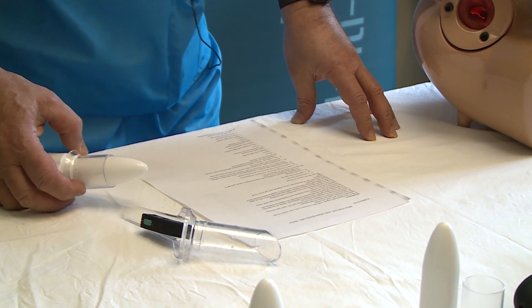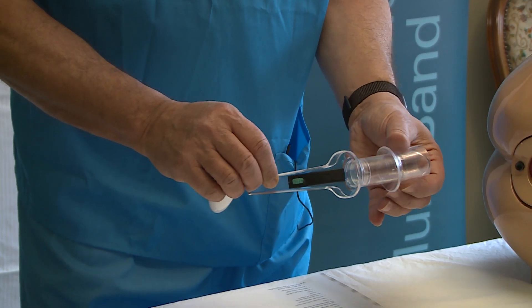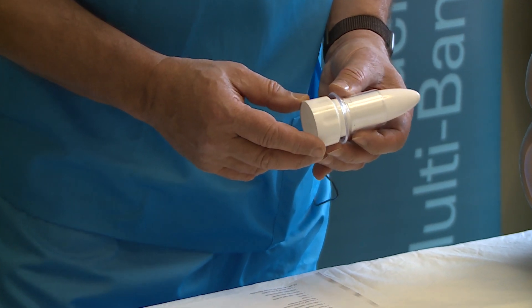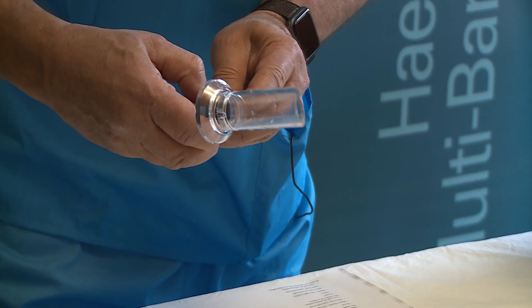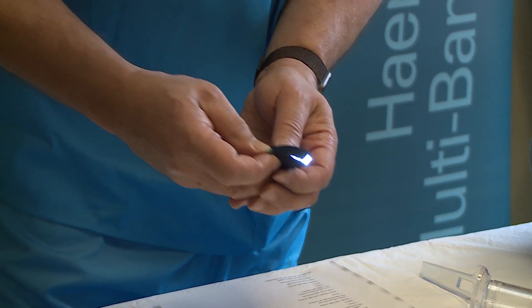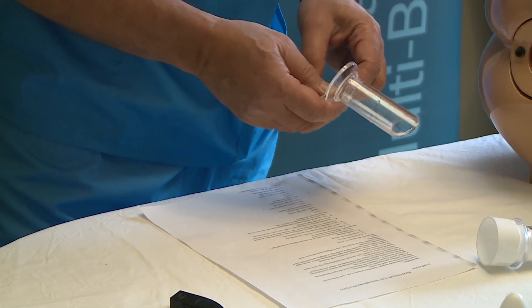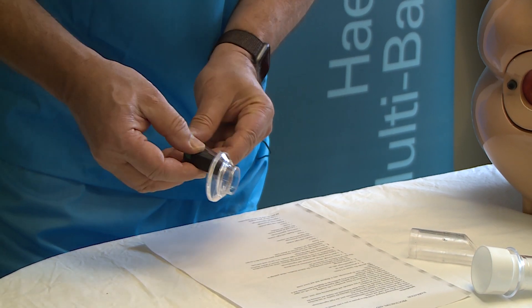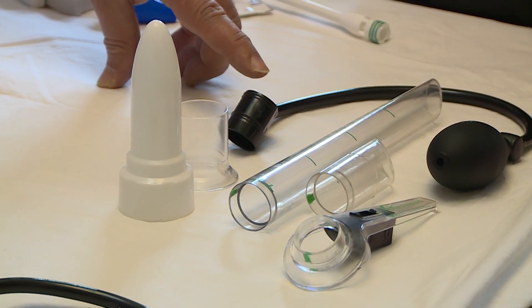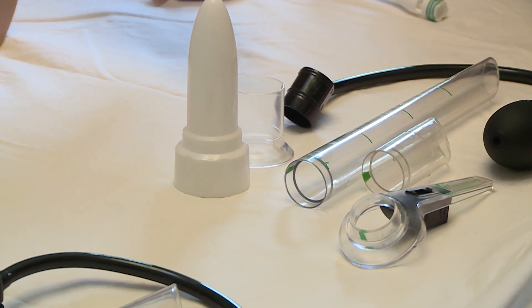The innovative features introduced include a sleeve through which the instruments — either proctoscope or sigmoidoscope — are introduced, a short trocar for both scopes, and an easily detachable light module containing batteries that provide excellent illumination, allowing disposal with minimal plastic. A detachable handle carrying the light module can be used with both scopes. The composite design shares detachable parts between the two scopes, reducing cost and plastic usage.